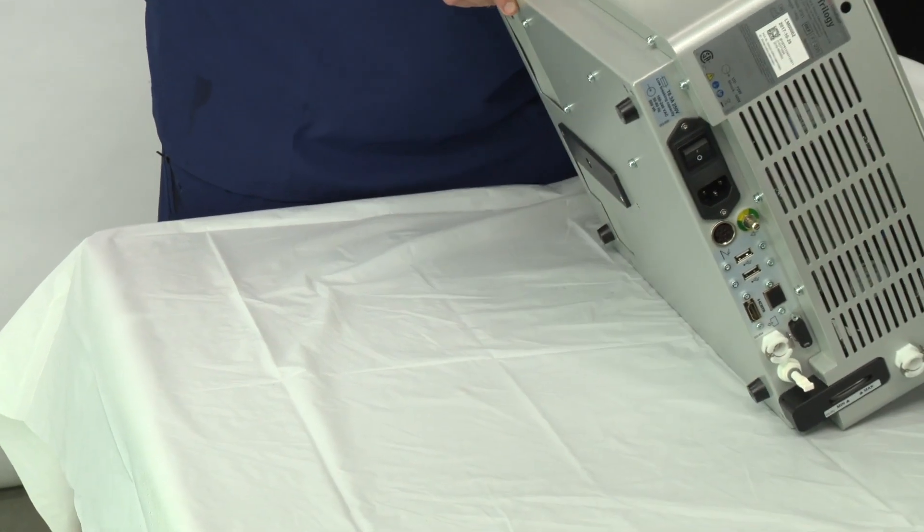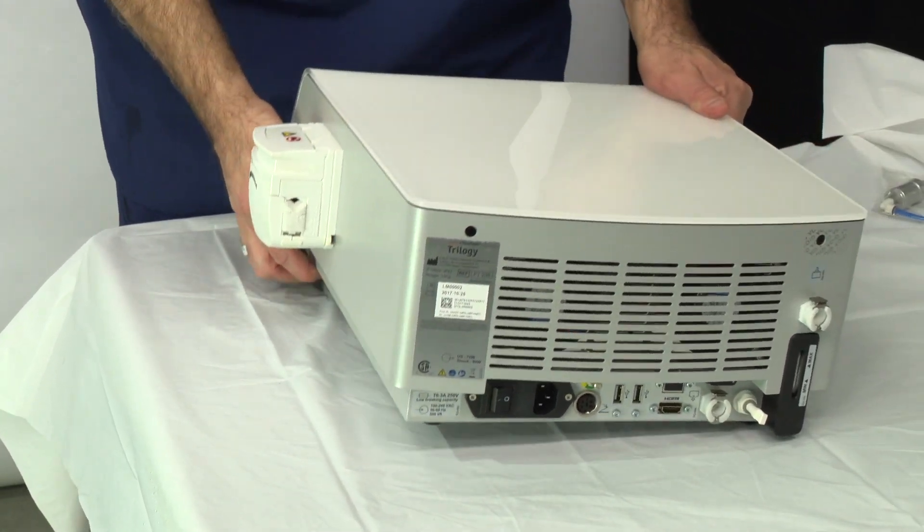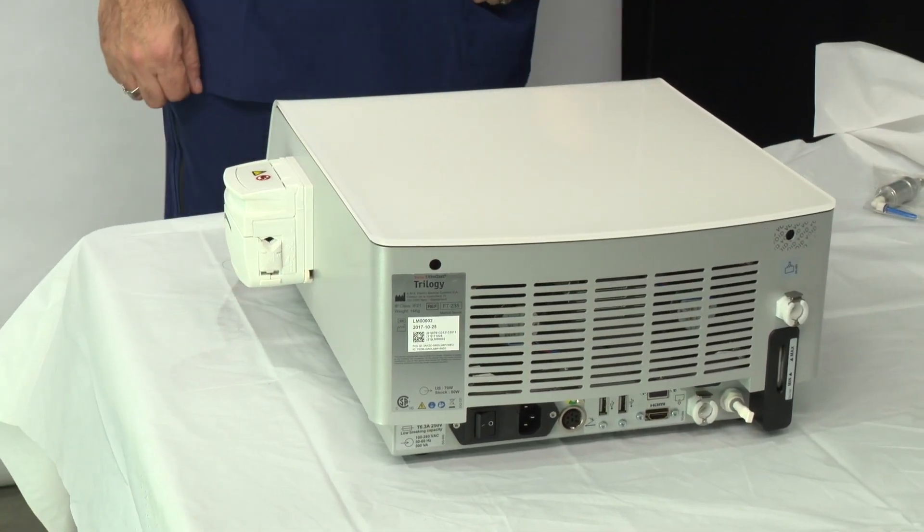Replace the console on a flat surface and refill the cooling system. Refer to the system setup video.